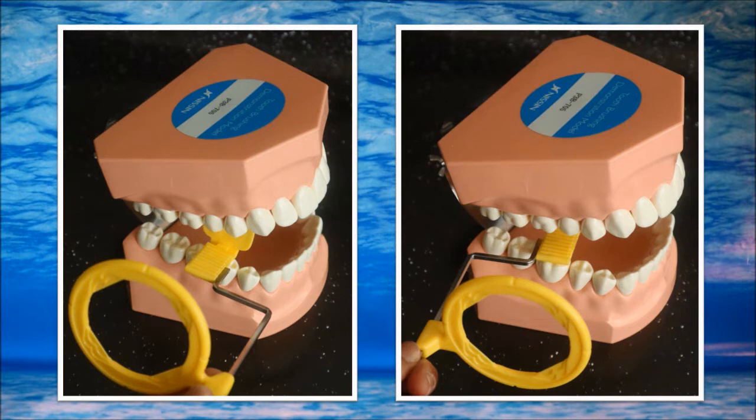Notice the bars: if it's facing toward the front of the face, that is a good thing. And if it is facing toward the back of the face, that is not a good thing.